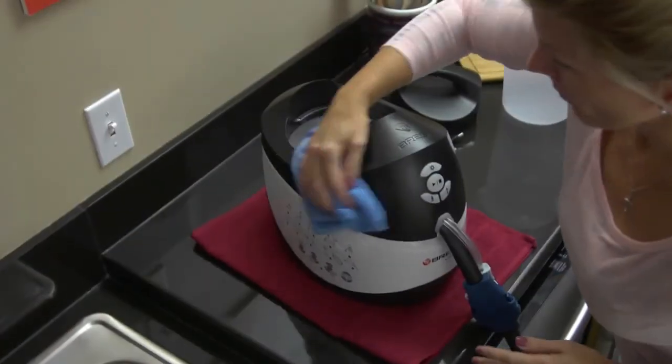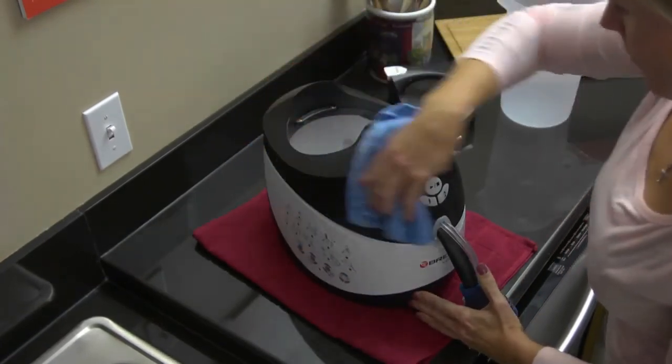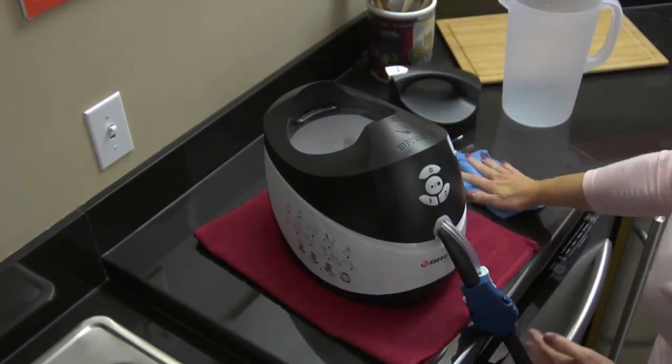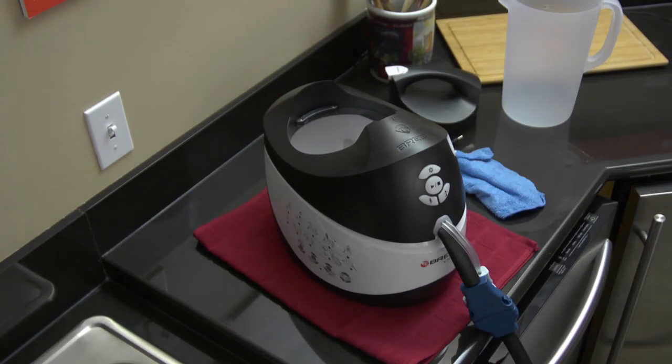For the outside of the V-Pulse, use warm water with mild detergent including Lysol, 70% isopropyl alcohol, Cydex, or 10% bleach solution.